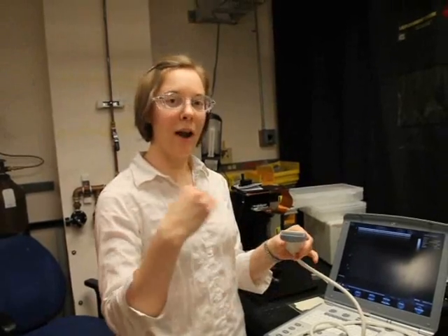Ultrasound Transducers is the heart of the Ultrasound system. You have the console, which is fairly inexpensive with today's technology. The transducer, which goes against your skin to image in your body, is very expensive to produce, requiring hours and hours of laborious dicing.